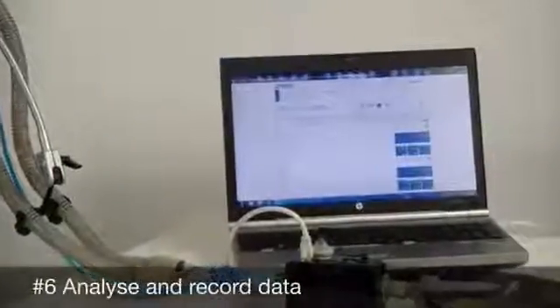Use the integrated web server to analyze and record data in more detail. Trending, graphs, and configuration are also available.